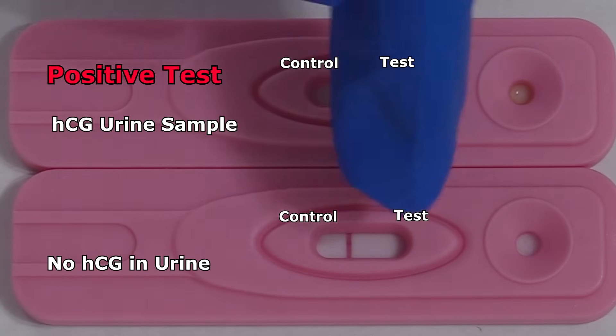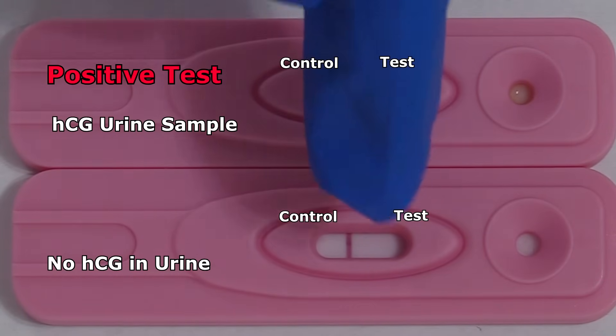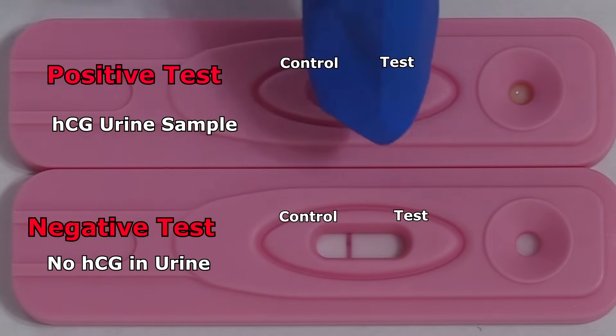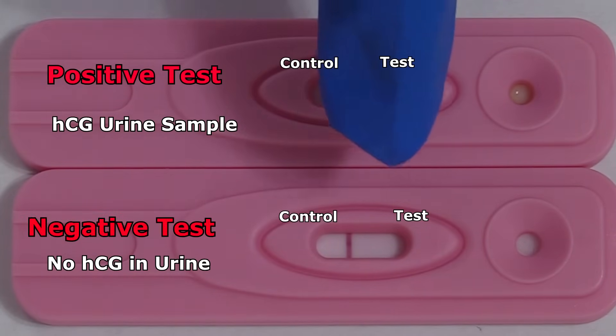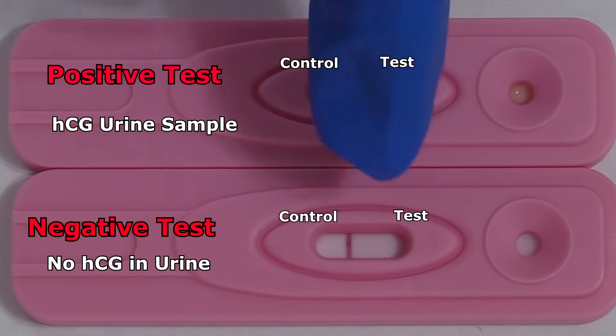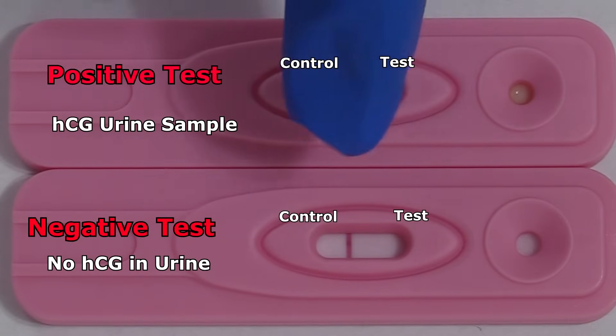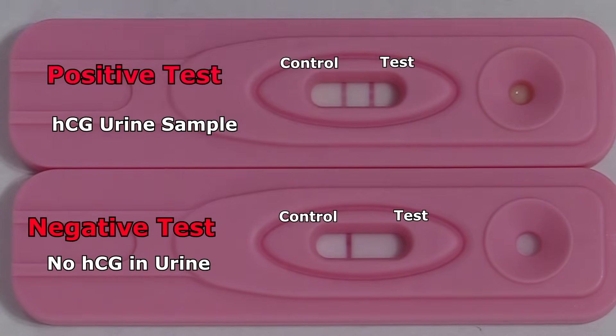However, here on the bottom pregnancy test, there is no line in the test area, so it is negative. This tells us that it did not detect HCG in that urine sample.